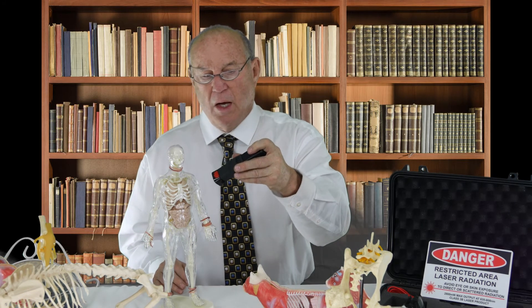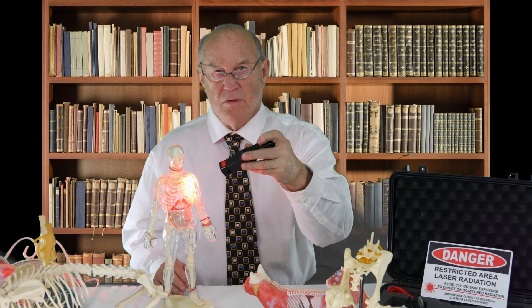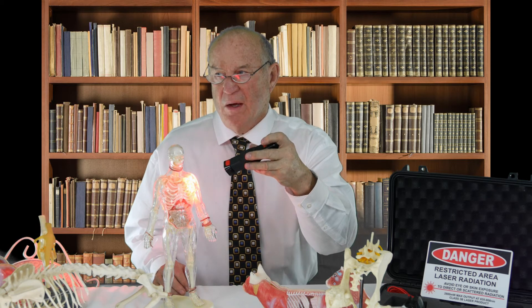Keep in mind that it may take six weeks of lasering the shoulder of the human being before you finally get this problem under control. A lot of people will bail out of therapy after two weeks, and practitioners will too, because they're used to therapy resolving the problem in a couple of weeks. But this one is going to take anywhere from three to six weeks.